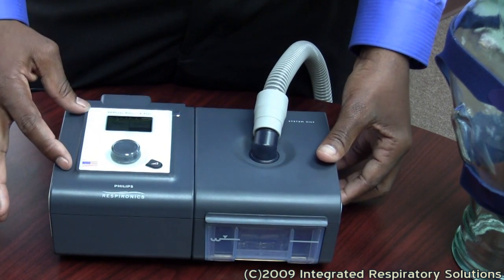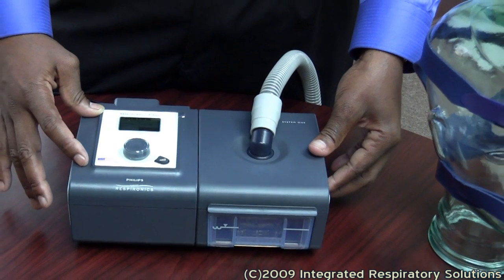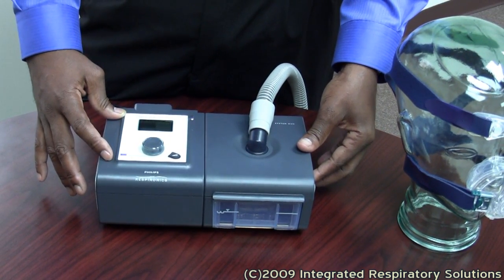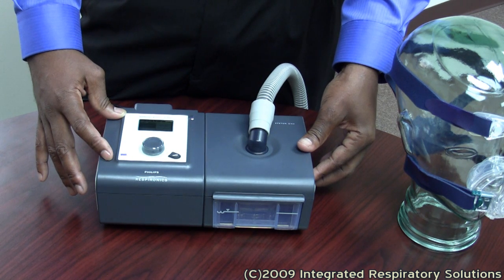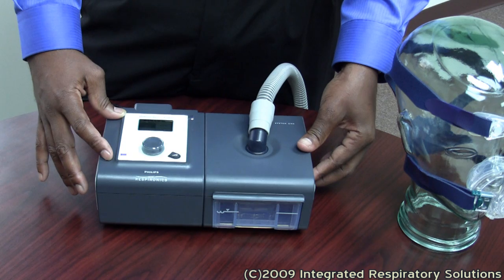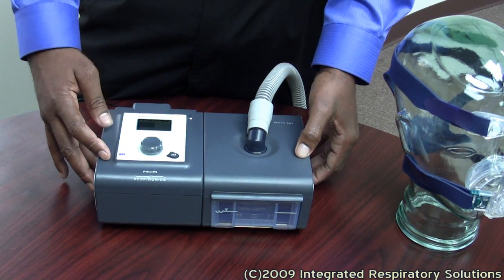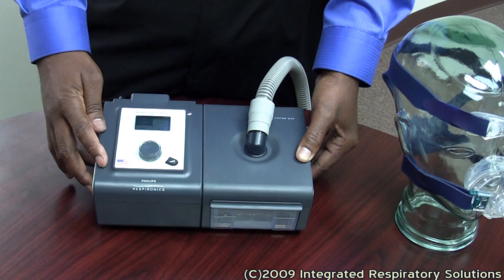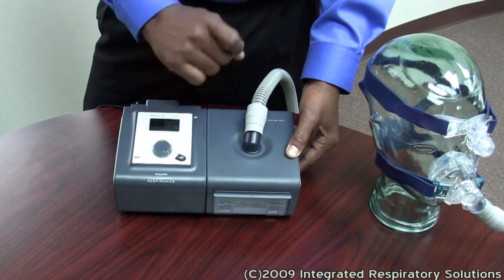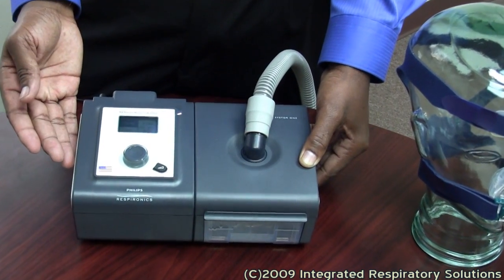The CPAP is programmed based on the sleep study results. Most CPAP units range from 4 to 20. Your setting could be anywhere within that range. If your pressure is a very high setting, most people find it very comfortable using the ramp. The ramp lowers the pressure so you can fall asleep comfortably at a lower airflow.